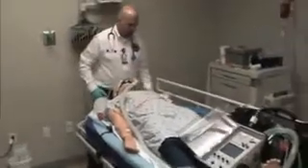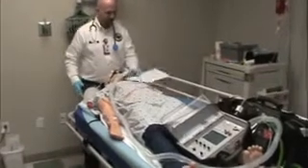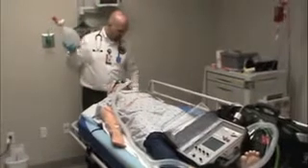Later. Some things about general safety. We want to make sure that we always have a bag valve mask and oxygen available. So it is not enough to bring a ventilator to the bedside. You also need to bring an oxygen source, and you need to also bring a bag valve mask.